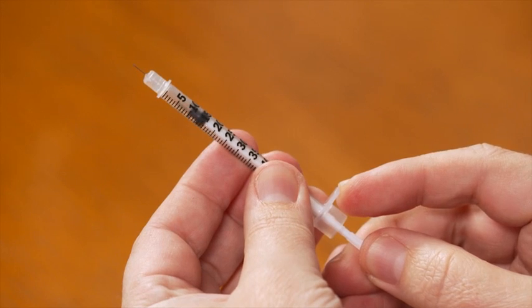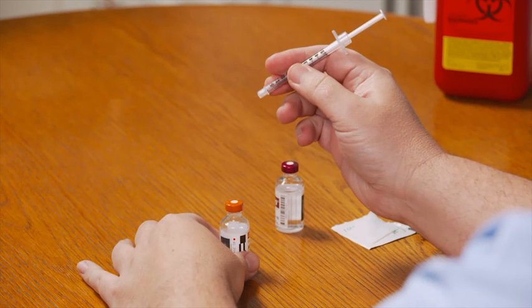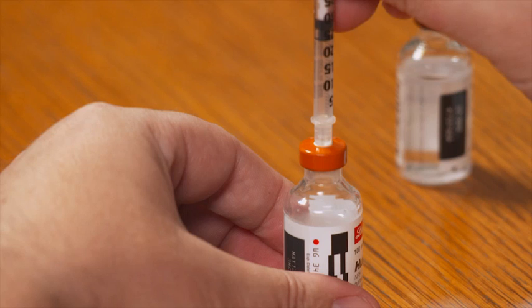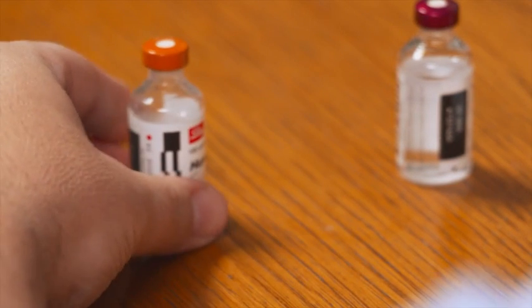In this example, my dose is 33 units: 23 units of cloudy insulin mixed with 10 units of clear insulin. Always put air into the cloudy insulin first. To get 23 units of air into the cloudy insulin bottle, pull the plunger until the end of the rubber stopper closest to the needle reaches the 23 unit mark. Hold the syringe like a pencil with your dominant hand and hold the insulin bottle on a flat surface with your other hand. Place the needle's point directly above the center of the bottle's rubber top, being careful not to touch the metal rim. Gently push the needle straight through the top of the bottle until the entire needle goes in, then slowly push down on the plunger to push the air into the bottle. You don't want to draw any cloudy insulin into the syringe yet. Remove the syringe from the bottle of cloudy insulin and set the bottle aside.